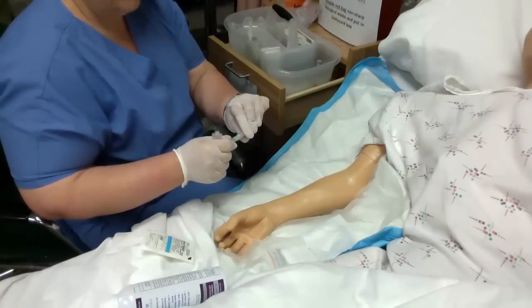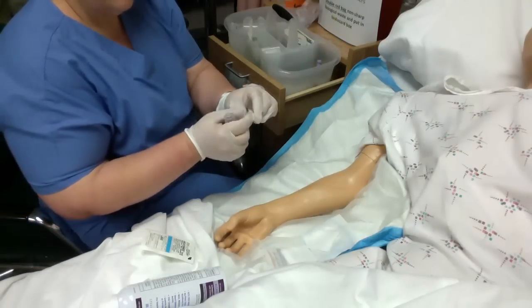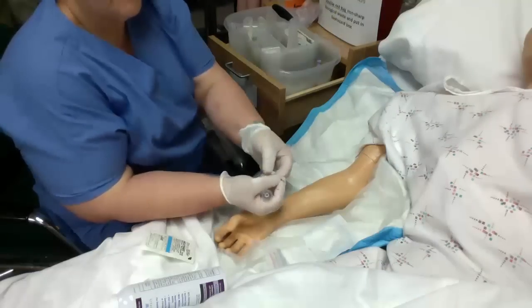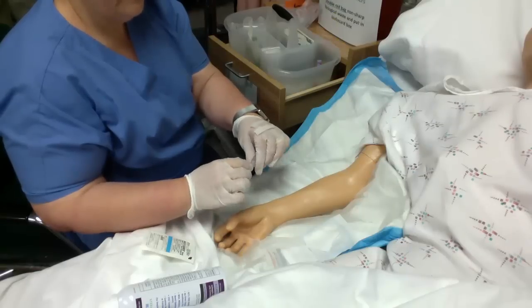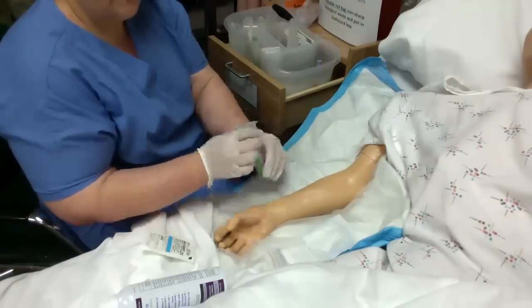The cover goes over the bubble, so you know this side is the patient's side — we don't need a bubble. These are covered with a little rubber, and underneath that rubber is a needle. So be careful with that; it is a sharp hazard. You just screw that in like that.